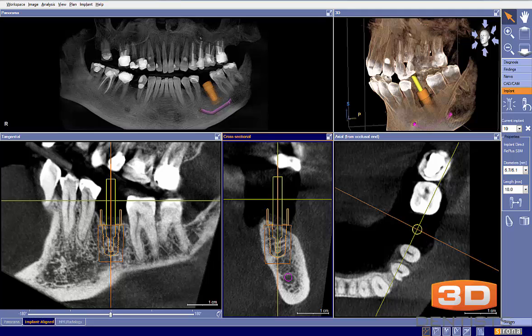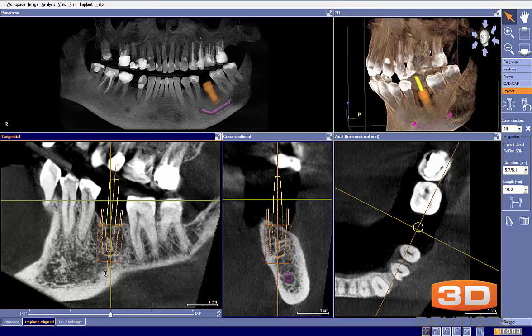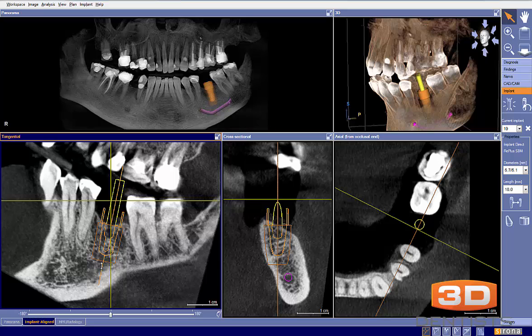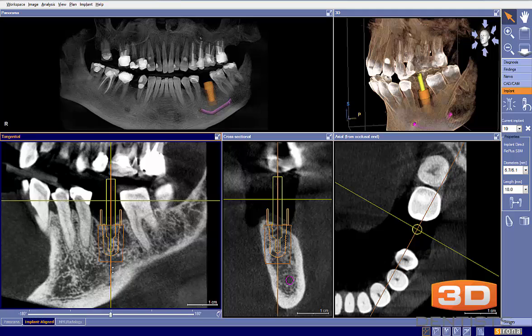The next thing we're going to look at is our occlusal plane, and here is where I see our most common mistakes. The occlusal plane is tilted down. The red represents the current occlusal plane, and this white line represents how I would like it to look — more in line with the curve of Spee. To correct this, I need to tilt our implant this way, about like so.